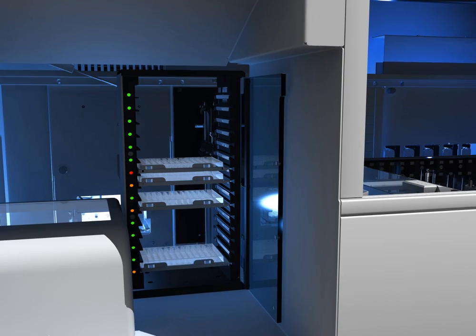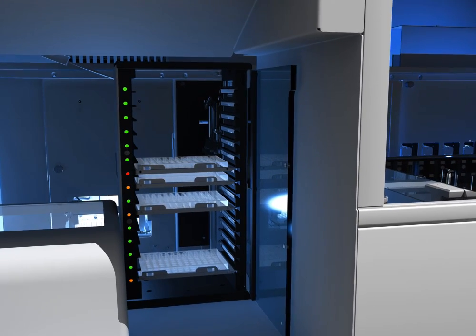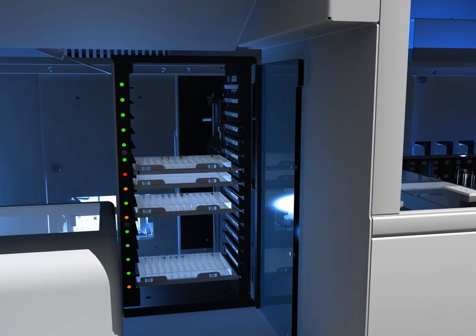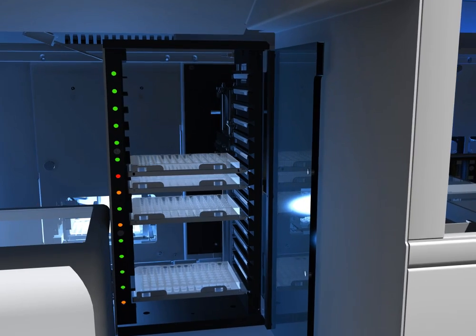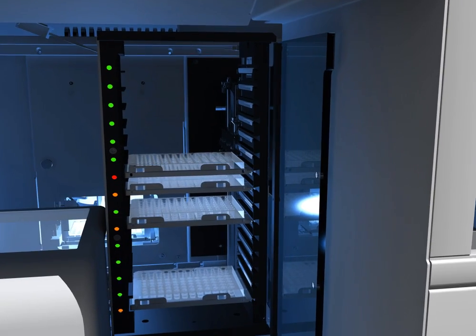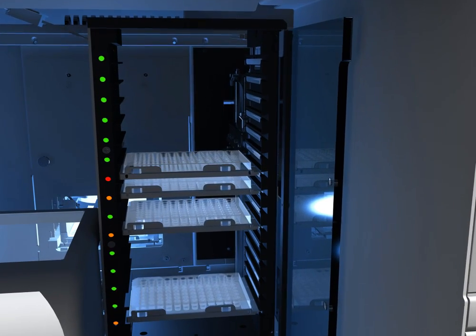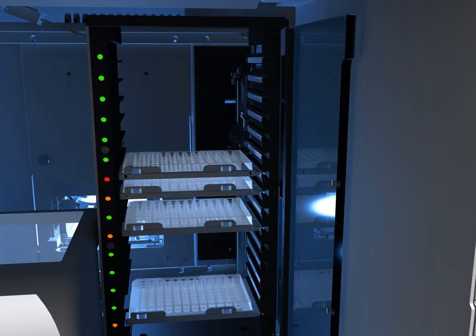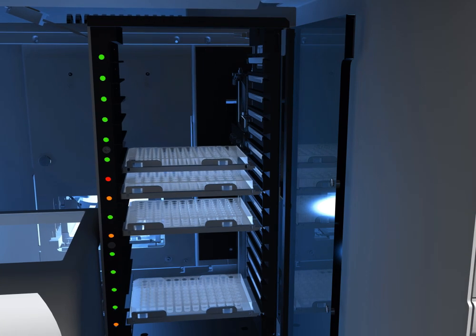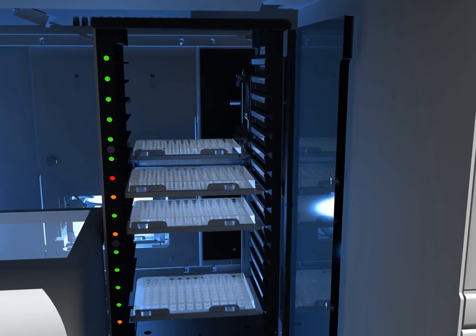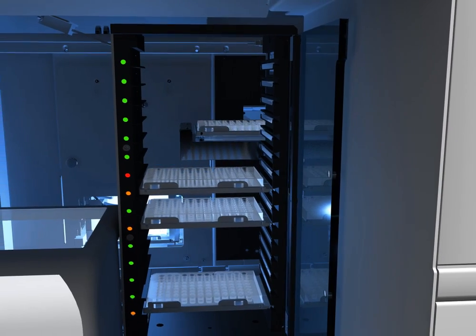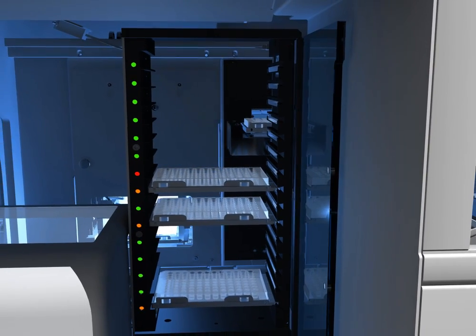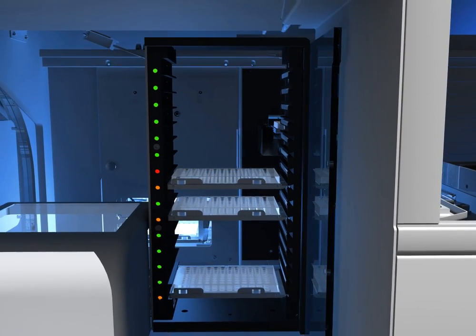To the left of the pipetter is NEO's microplate loading tower. NEO has onboard capacity for 15 microplates. Because Immucor uses two technologies on NEO, capture solid phase and hemagglutination, various types of plates can be loaded and NEO will know exactly what inventory it has on board via the microplate's barcode.